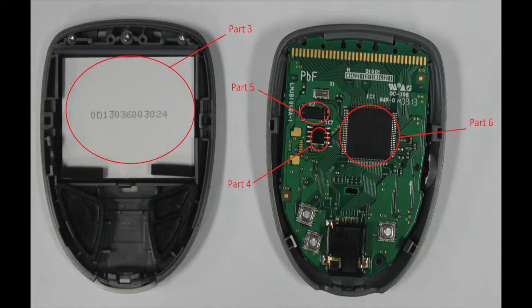The silver squares on either side of the sensor strip port towards the bottom of the device are where the large buttons on the front casing interface with the circuit board.